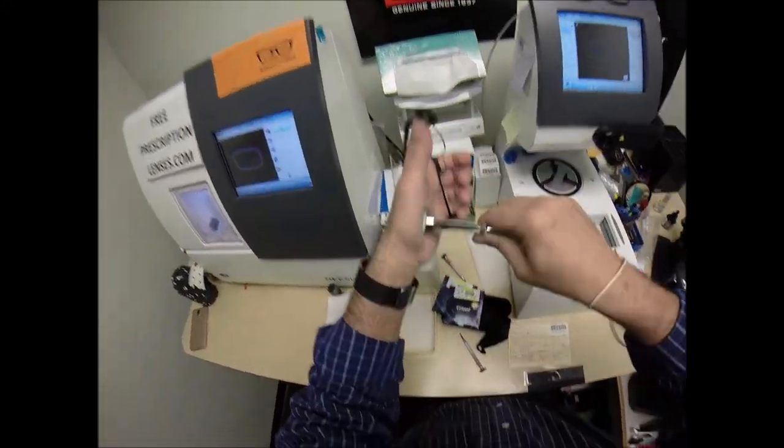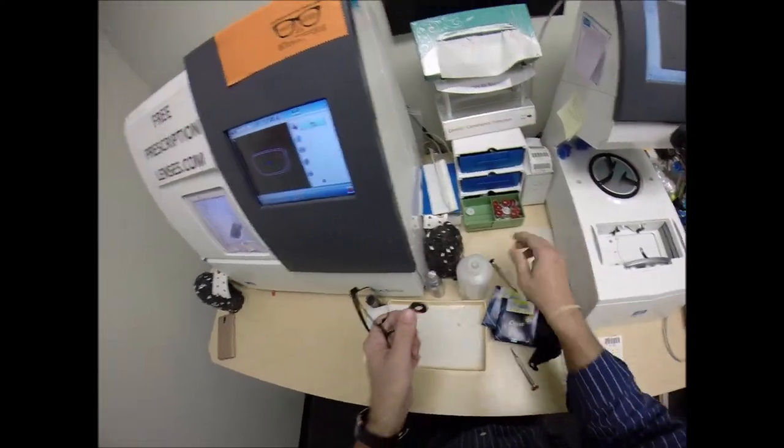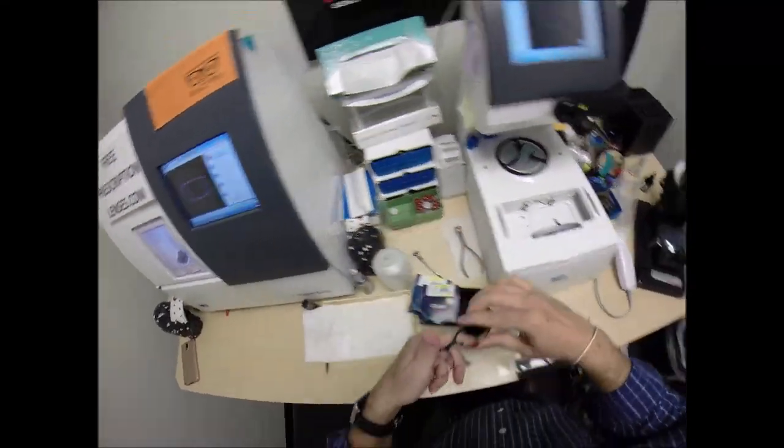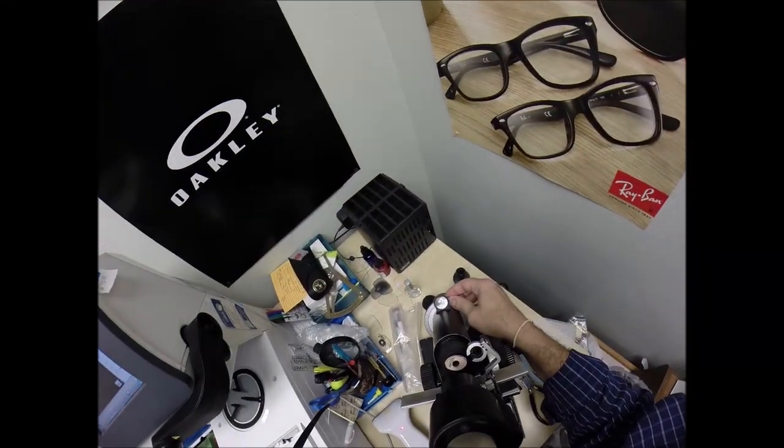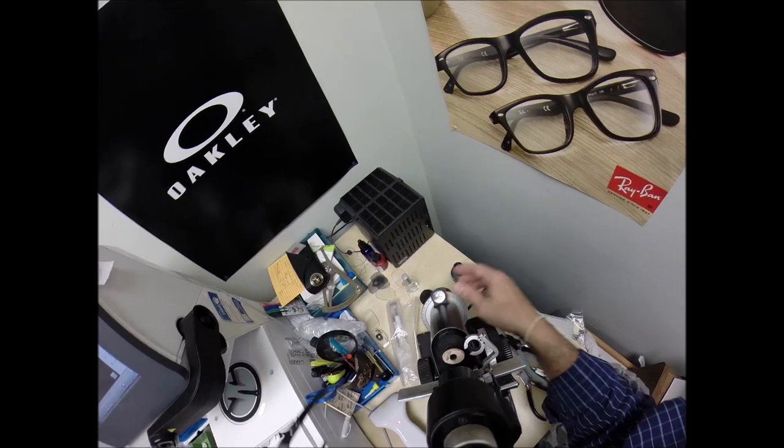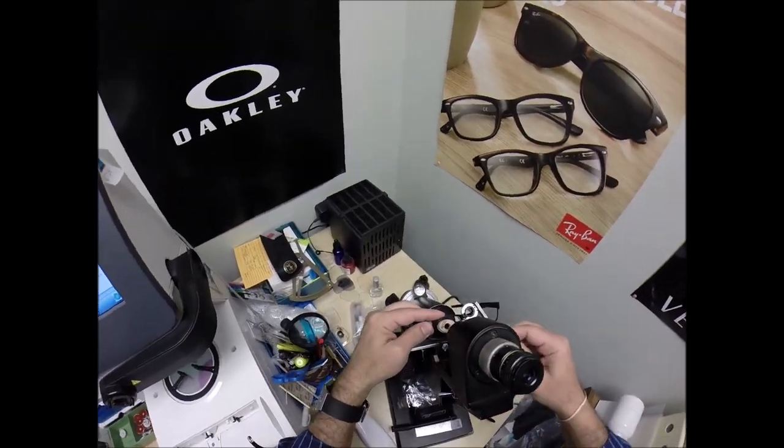So, I'm going to take this block off, pull the sticker off, use my hand-approved drying method, throw that back in there, place that sticker on top of my collection. Ooh, that's a big fat PD or optical center. Turn that back to 111. Put the lens in over that black dot.